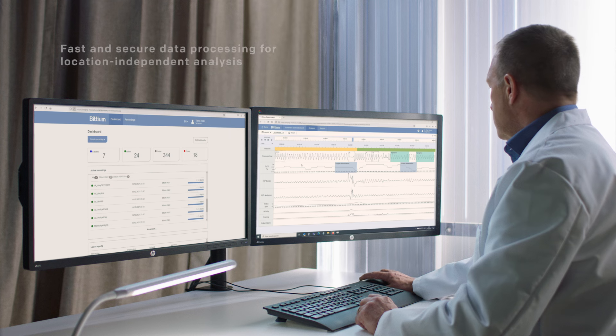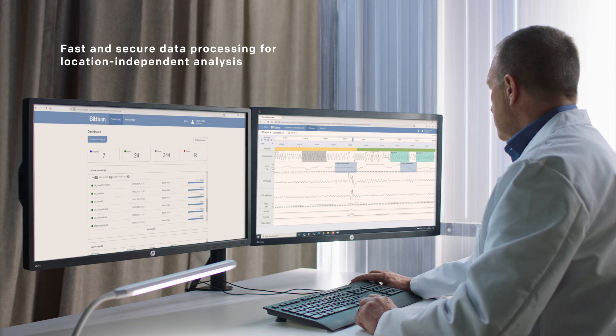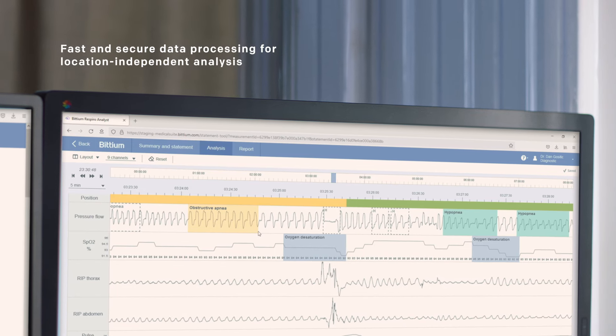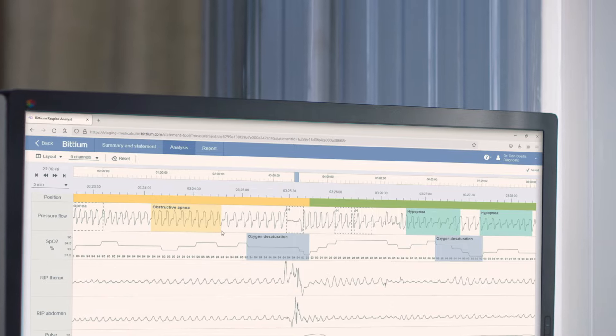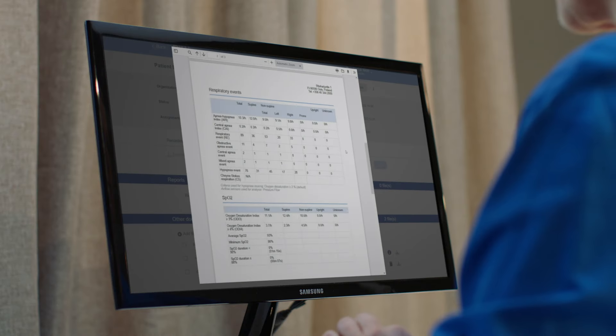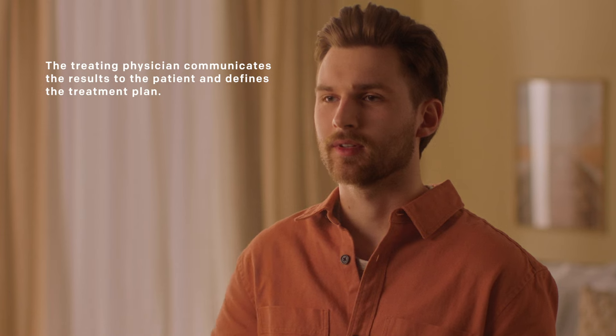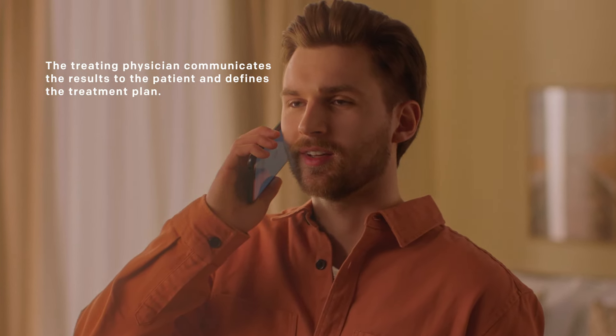The patient then returns the device to the clinic, where a health care professional transfers the data from the device's memory card to the analysis software. The measurement results are available online, allowing the physician to analyze the data from any location. The patient's measurement data is analyzed and turned into a comprehensive report with Bittium Respiro Analyst software by a sleep specialist. The treating physician is notified when the report is ready for evaluation and then creates a comprehensive treatment plan for the patient.